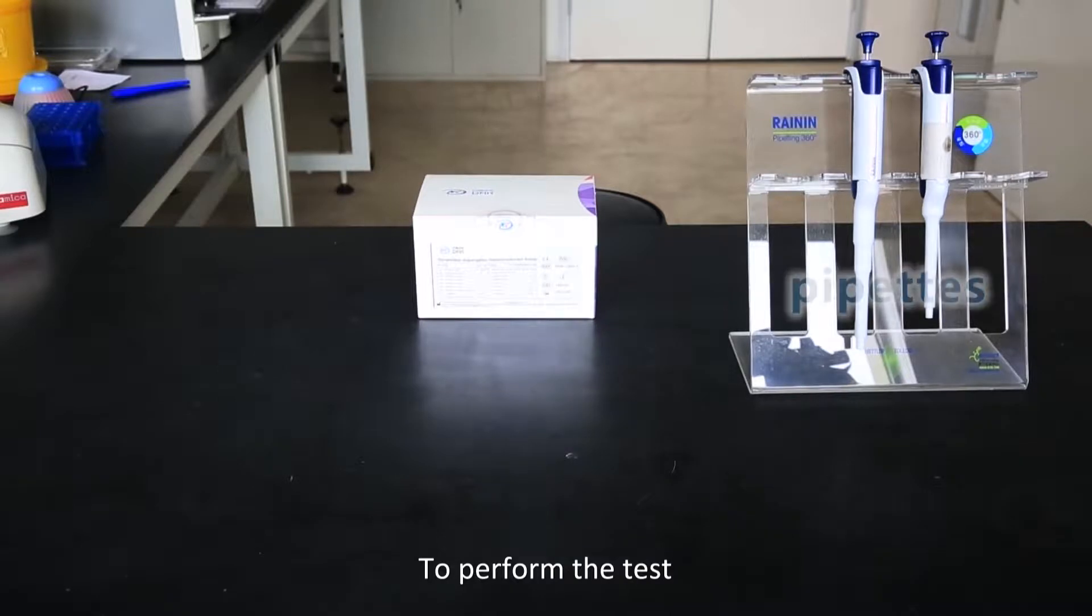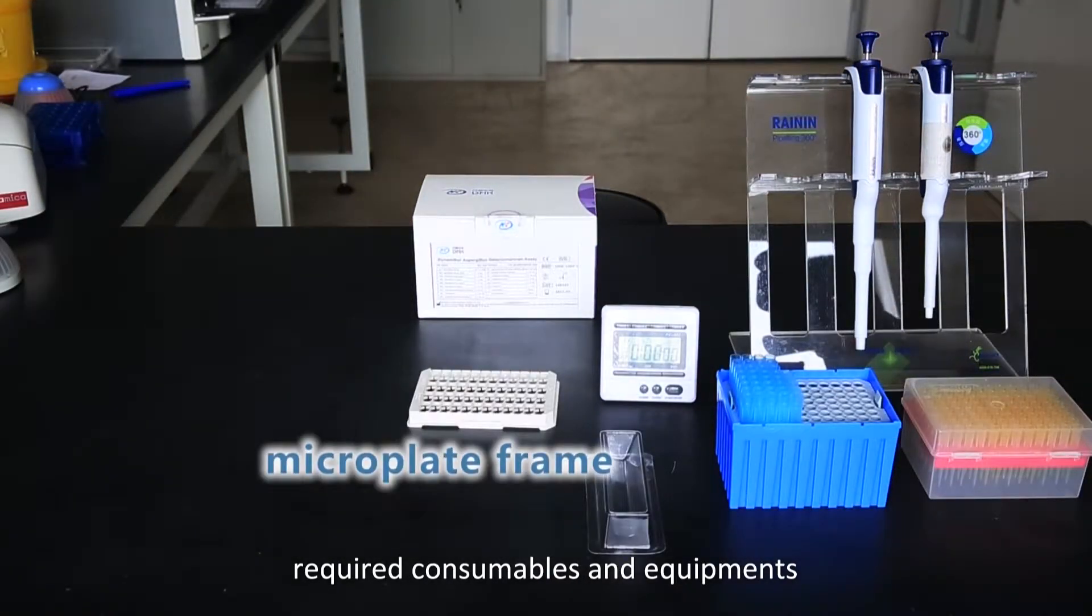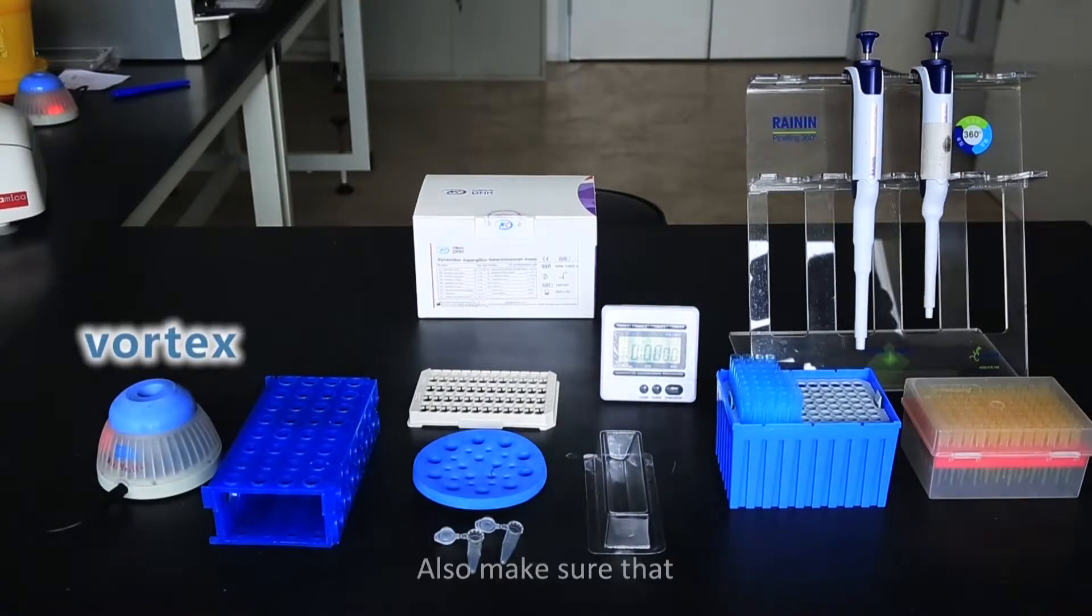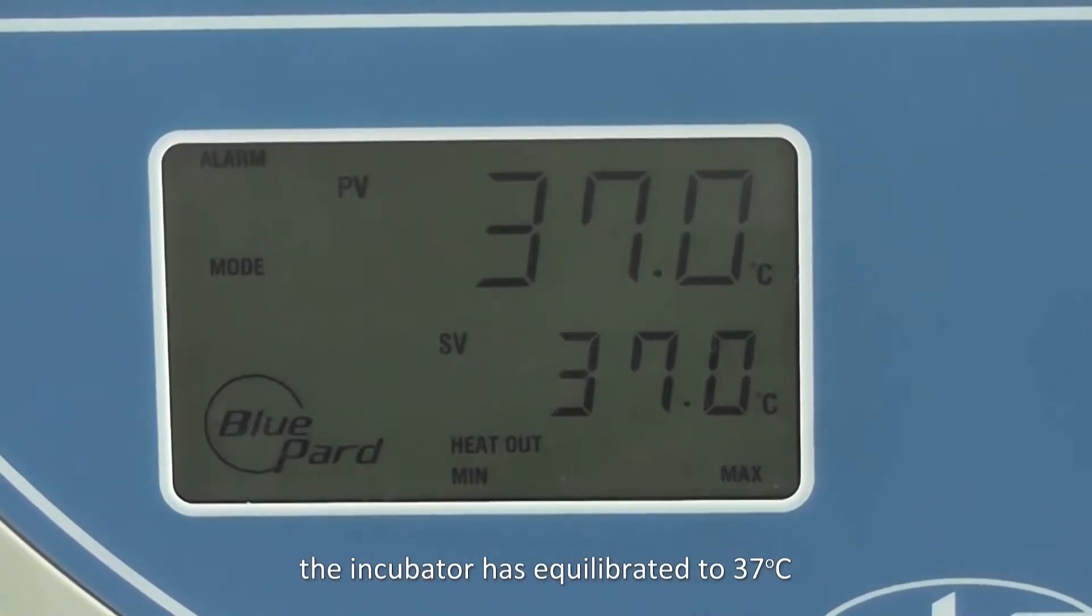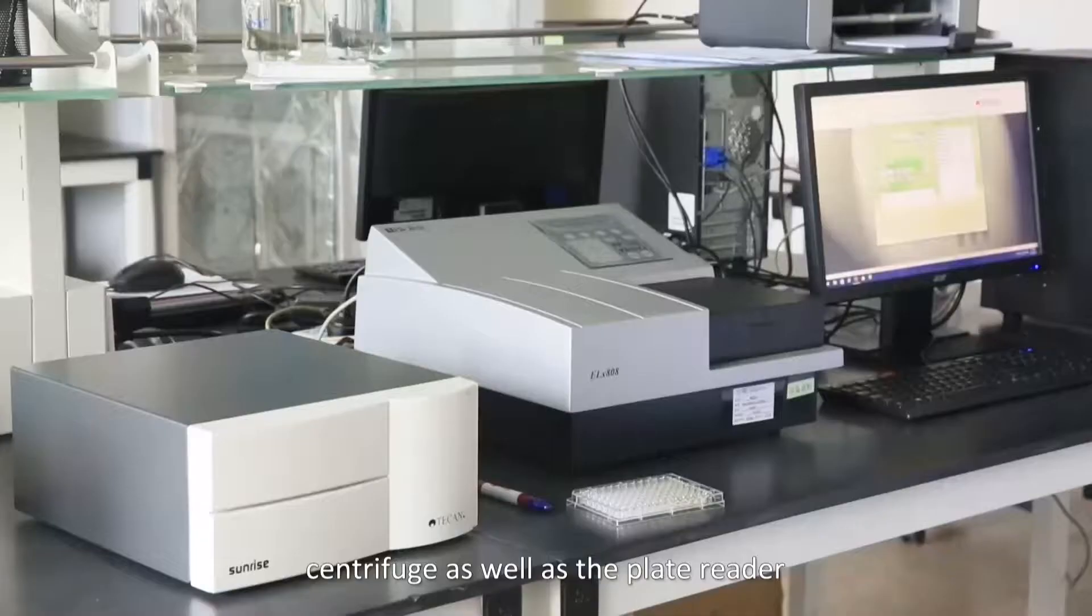To perform the test, ensure that you have all the required consumables and equipment. Also make sure that the incubator has equilibrated to 37 Celsius and turn on the water bath, centrifuge, as well as the plate reader.